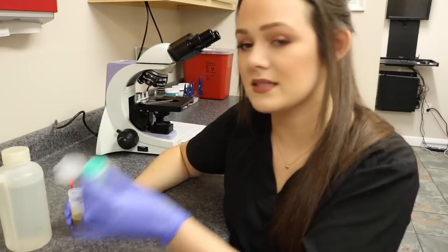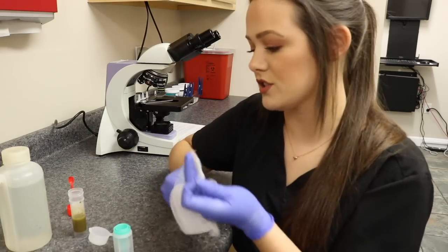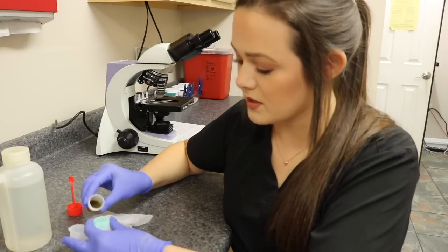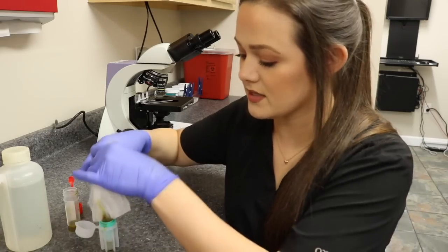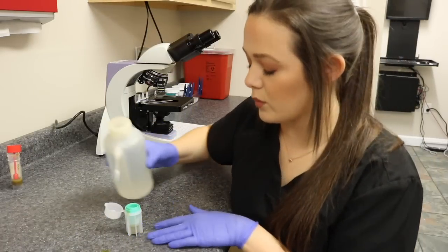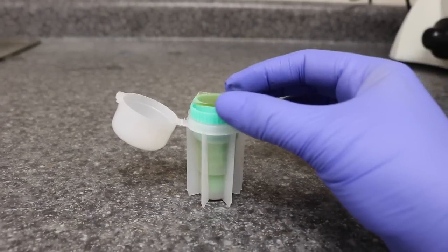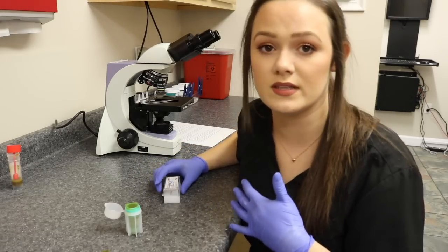Once my sample is mixed, I'm going to take my flotation cup and some gauze just to strain out the large particles. I'm just going to pour the sample into the cup — all the larger particles are going to get stuck in the gauze and I'll throw this away. Then I'm going to fill the sample to the top until there's a little bubble, take a cover slip and place it right on top, and let this sit for about 10 to 15 minutes and then we'll come back and read the sample.